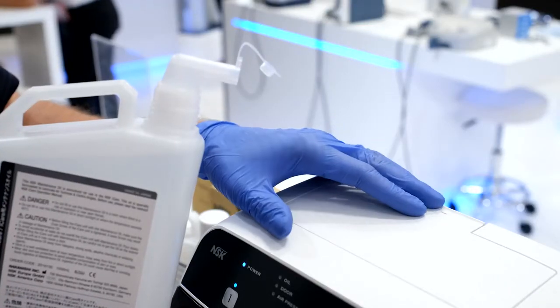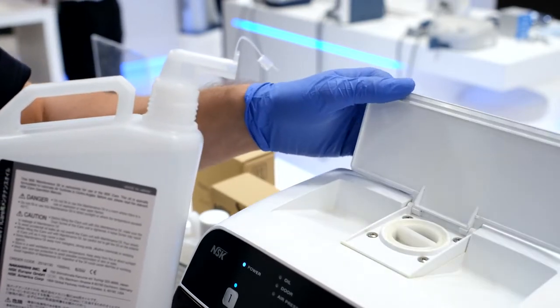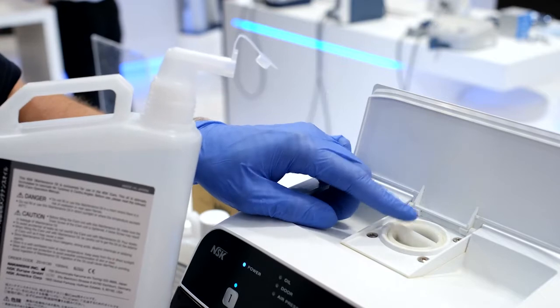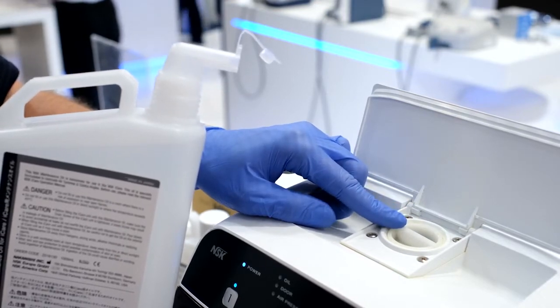Open the cover at the top, remove the oil fill cap, and insert the oil filling nozzle. Slowly and carefully pour the maintenance oil so as not to spill any. When filling is complete, securely attach the oil fill cap.